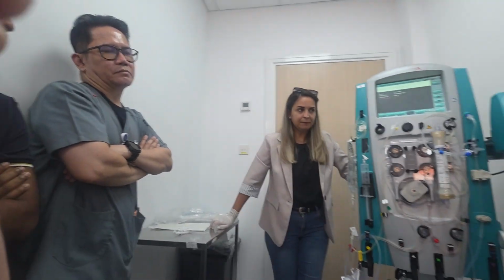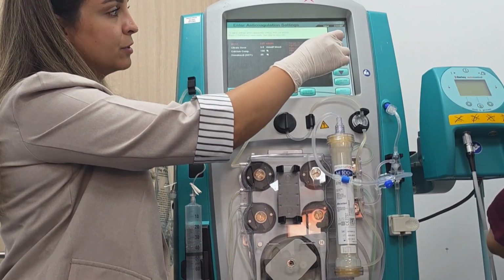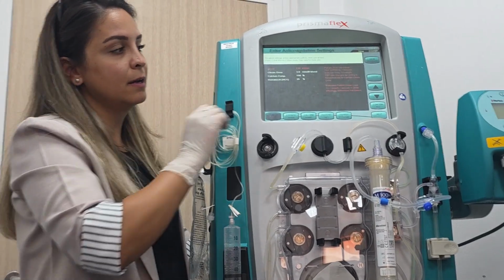Then you will be safe, because if your patient is really having hemodynamic instability, you're not going to put fluid removal right away, right? If it's really at the maximum level of vasopressors, then I don't think that you're going to start CRRT, and your doctor would not start CRRT. So from the start, it's up to you. Okay, so let's make it the maximum, make it 130. Then confirm.